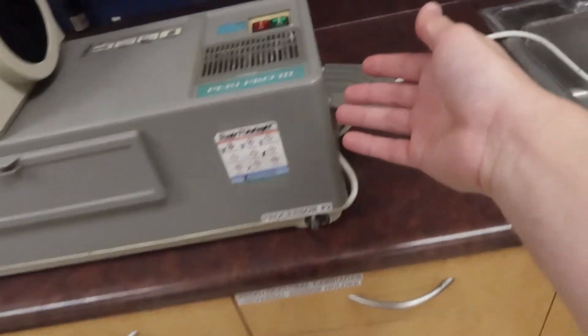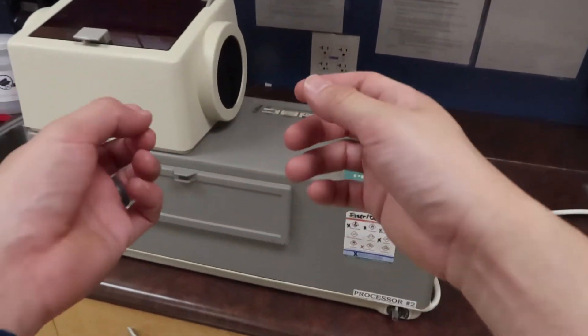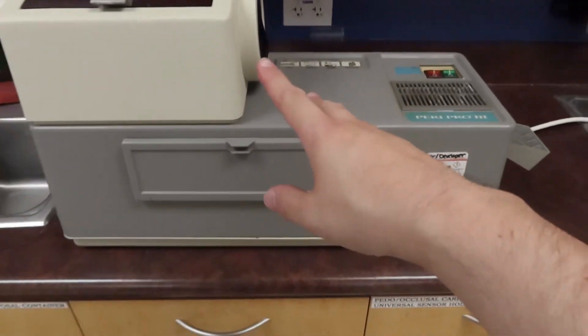Let's take a look at what's inside here so we can look at the guts of this machine and see how it works. But first, before we do anything, we're going to want to always use gloves.